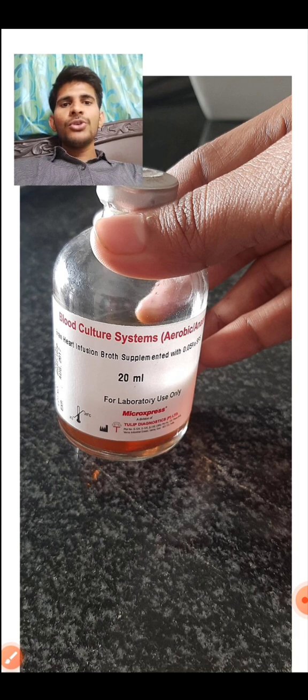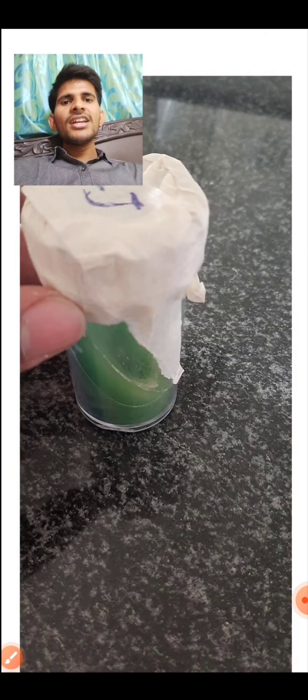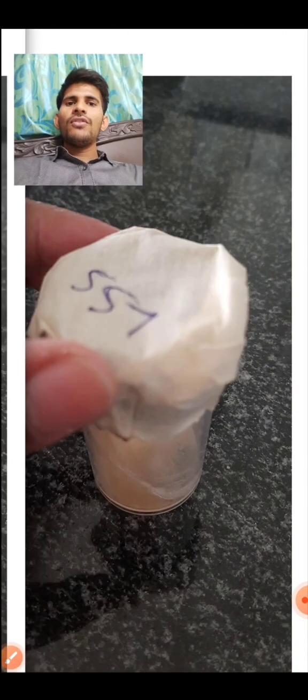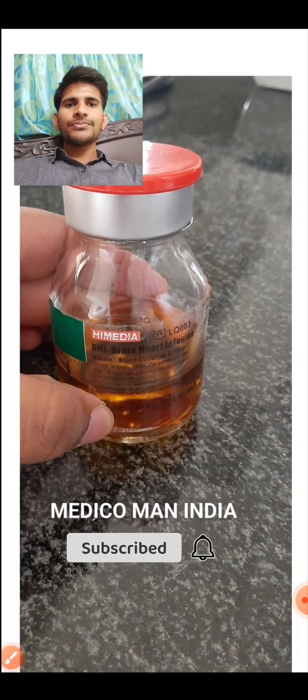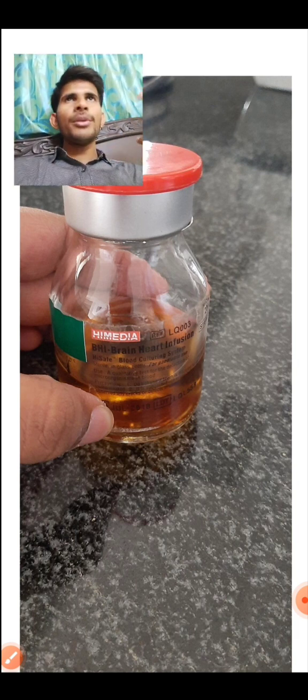The one you are seeing is brain heart infusion, which is for both aerobic and anaerobic organisms. How to remember that it is brain heart infusion? In the exam, the label will be closed. Something which looks like alcohol will be brain heart infusion. This is also Lowenstein-Jensen media. This is Loeffler's serum slope, which is used for Corynebacterium diphtheriae, LSS. And this is another brain heart infusion. You can see it is written there. According to the new update of YouTube, you can zoom and see it.